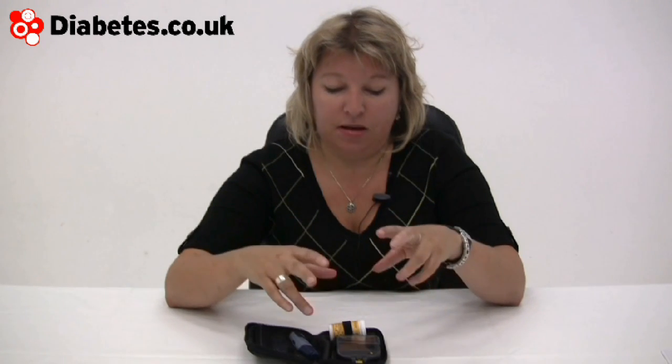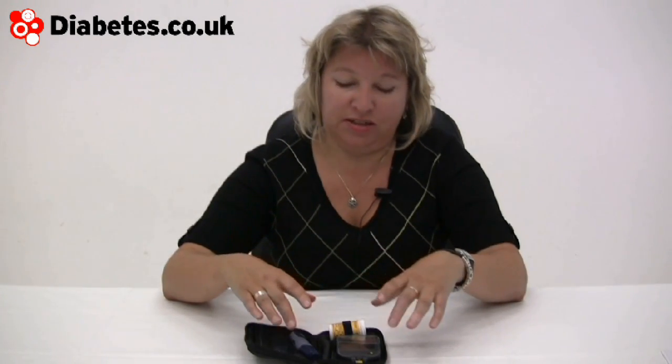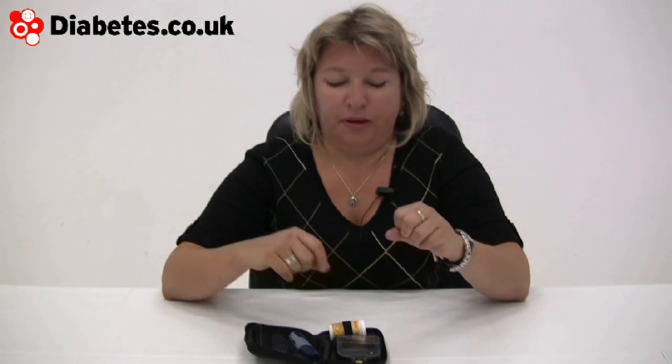You'd need to have knowledge about your insulin sensitivity and your carbs-to-insulin ratio to set the machine up. What the meter — or blood glucose system, as they tend to call these machines now — has on board is a bolus wizard. Anyone using a pump is familiar with it, and anyone using a pump won't need one of these because the pump is already doing it.